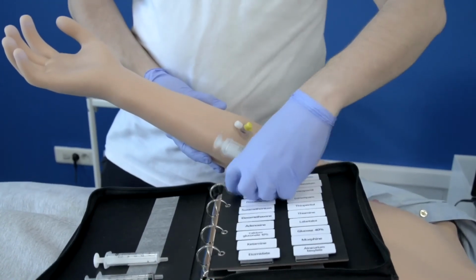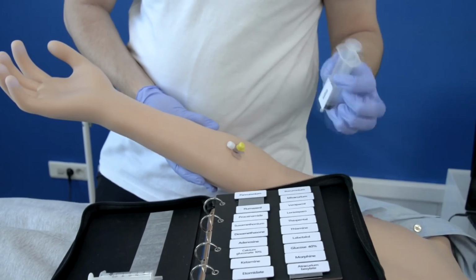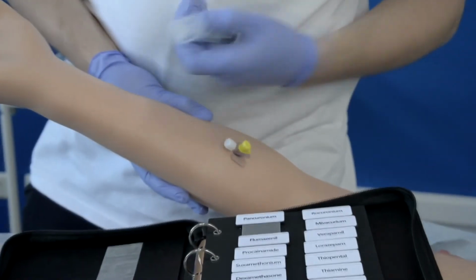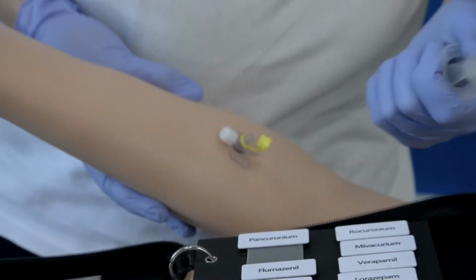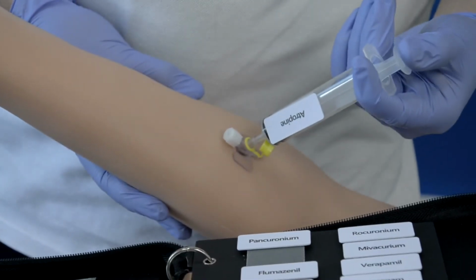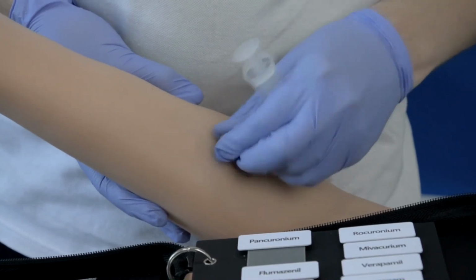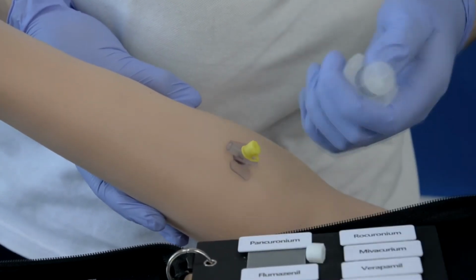In his right arm, Leo has a drug recognition port that uses RFID tags that can also be personalized, and the port measures the amount and speed of medication injected. An IV arm for Leonardo can also be purchased.